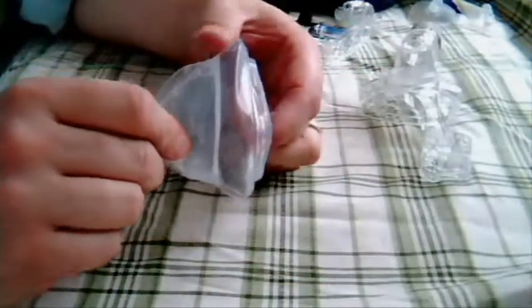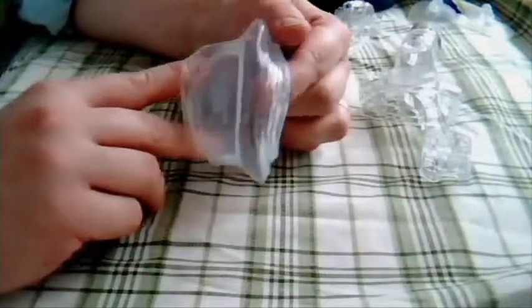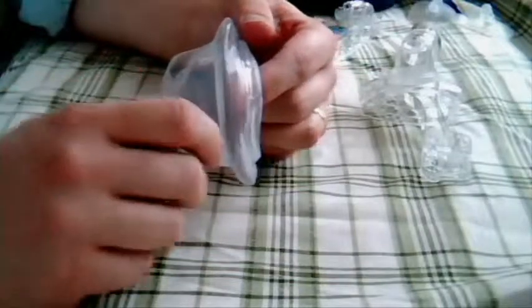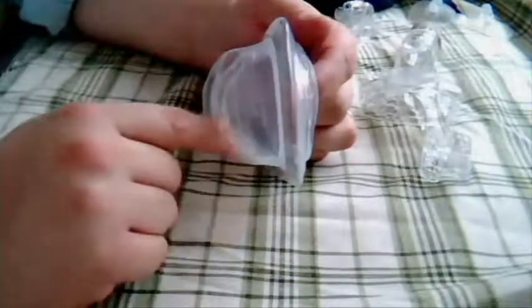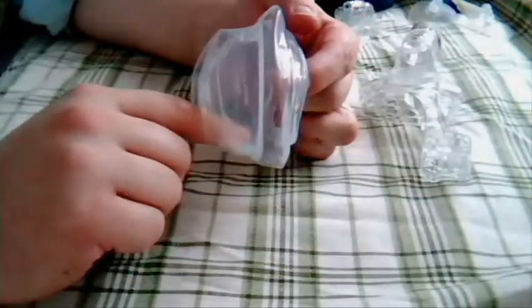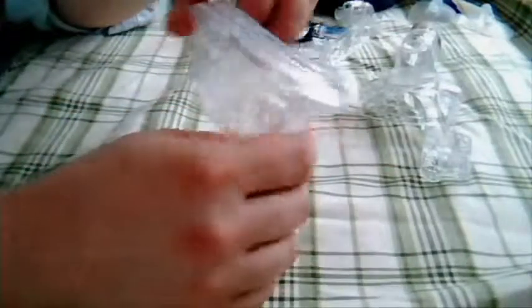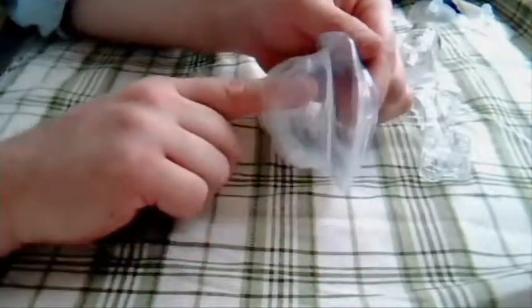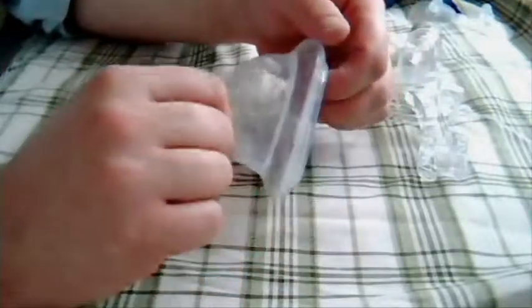The good thing about the design is that when I'm sleeping I actually don't have a problem with it. My FlexFit 407 - when it would rain out and the condensation would get into the mask, that sucker would drip back into my nose all night long, and that's one of the things that wakes you up. But with this, one of the nicer things is that I do get condensation in here, but it collects and it doesn't disturb me while I'm sleeping. What happens is I go and take this mask off - as soon as I take it off, that stuff dumps right out and hits me in the face. If I'm going to the restroom at night or waking up in the morning, you aren't the most lucid person when you're getting up, and then to have a tablespoon of water come flying out of this thing - that's pretty alarming.